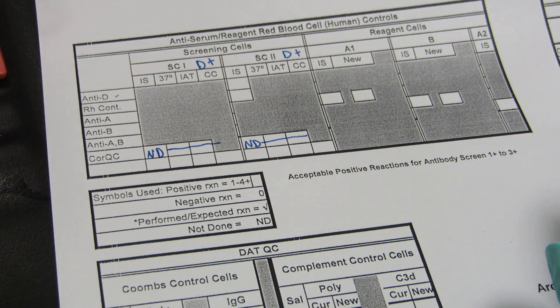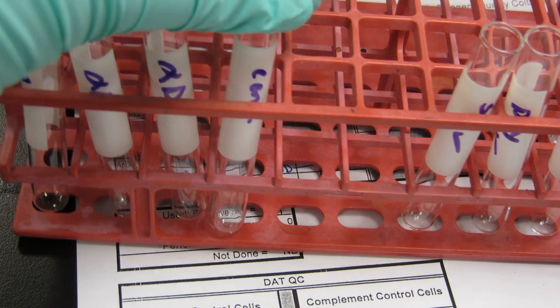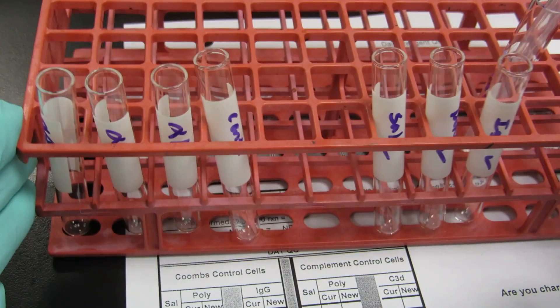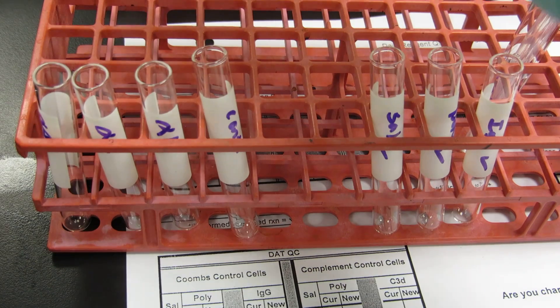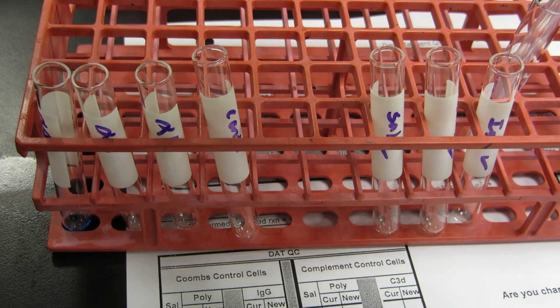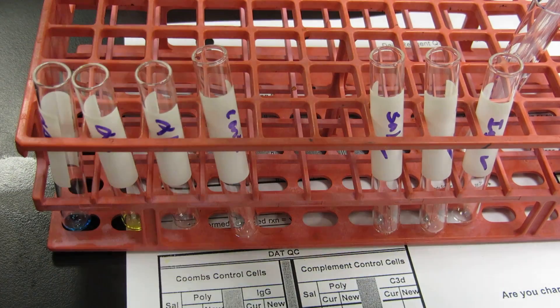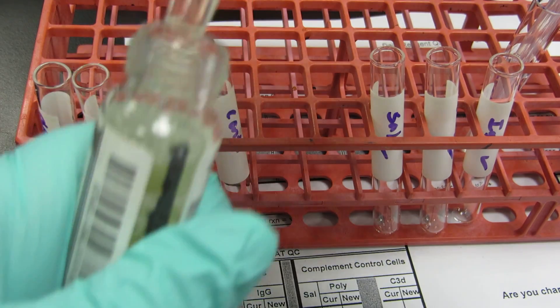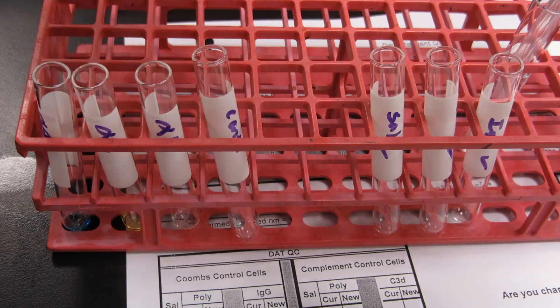I've already labeled some tubes: anti-A, B, D, and our control, and then saline, poly, and anti-IgG tubes. Clear stuff in first — so I'm going to put my anti-A one drop into the tube, my anti-B one drop, my anti-D one drop, and my monoclonal control one drop.